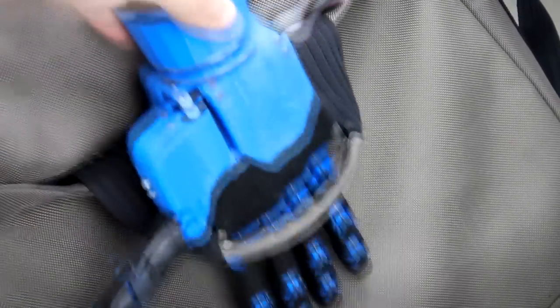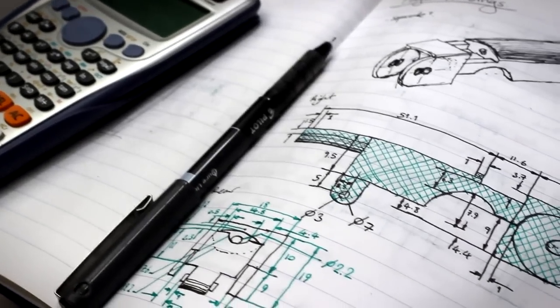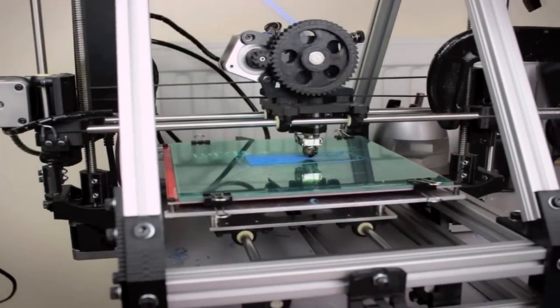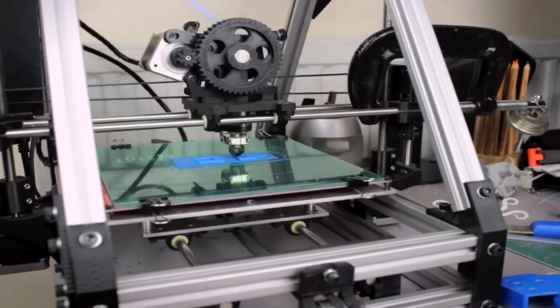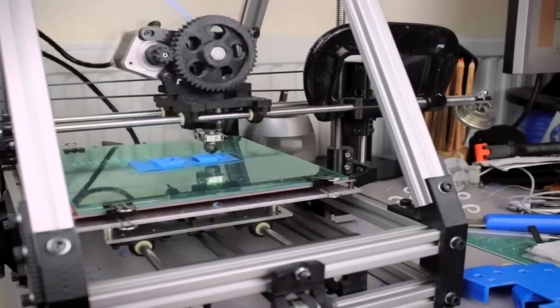The Dextrous can offer comparable functionality to leading robotic prosthetic hands at one hundredth the cost. Two of the main reasons that these devices are so expensive at the moment is the materials and the customization. Instead of using high cost materials like titanium and carbon fiber, we can use 3D printing and a durable plastic compound called ABS.